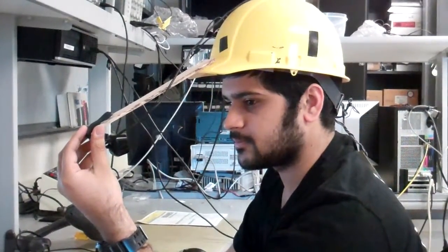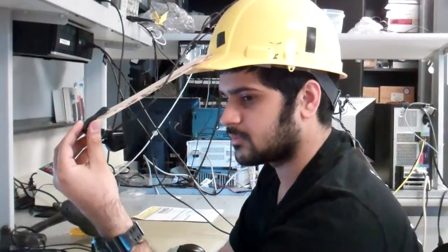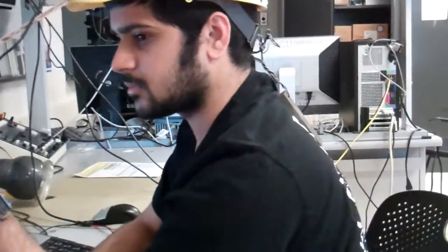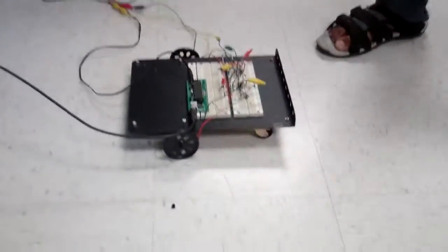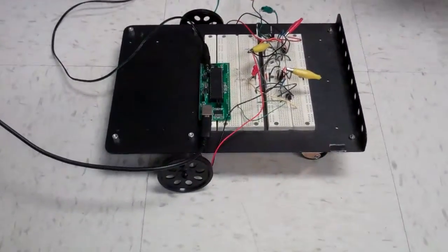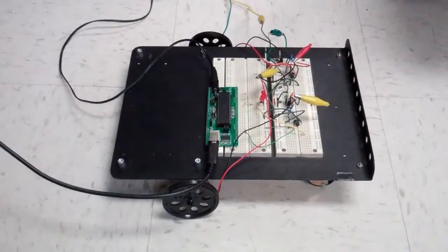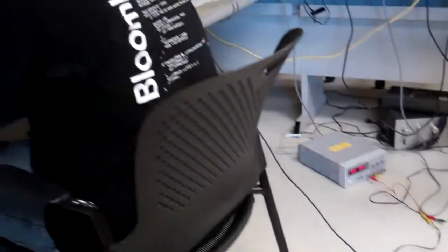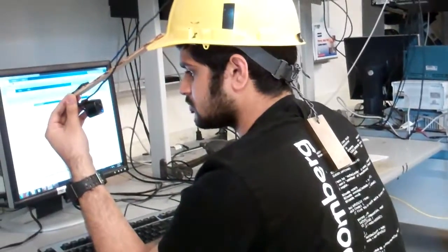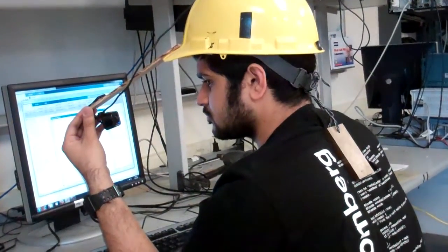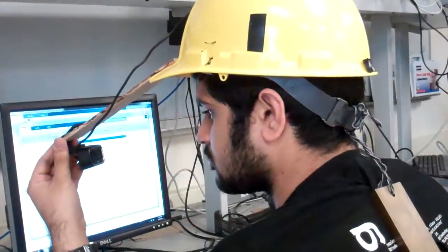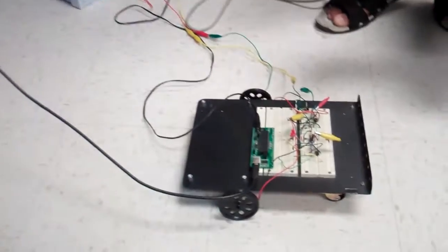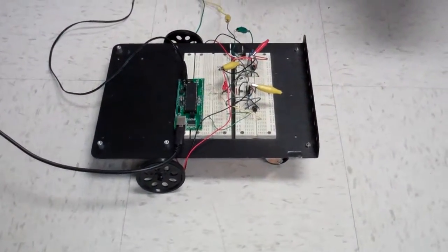For purposes of the demo, the wheelchair is a model. This is a small prototype of a wheelchair. And since we cannot connect the camera here, he'll be having a camera onto his head mount. So the signal will be transferred from his head mount. And accordingly, wherever he looks, the wheelchair will move in that direction. In a production model, of course, the head-mounted display, the computer, and the control system would all be on one platform.